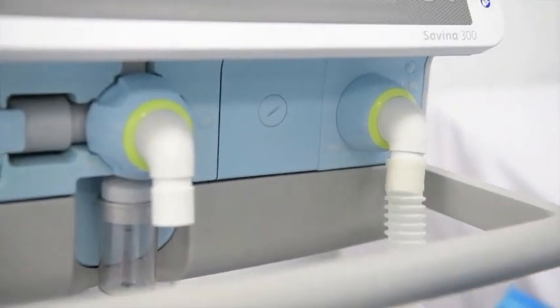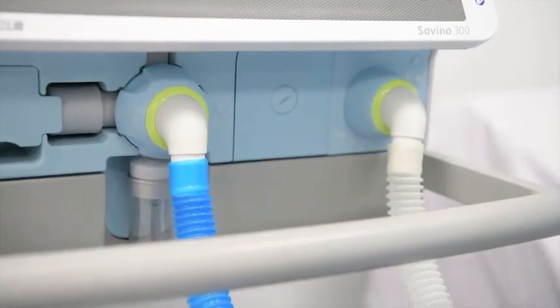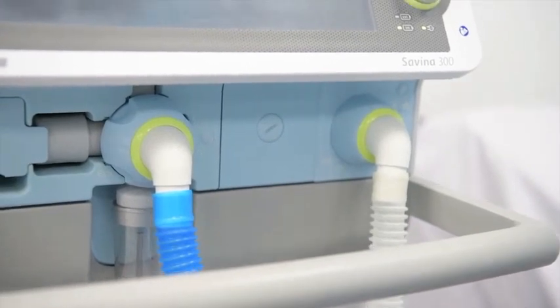One for inspiratory arm and the other one for expiratory arm. These two will make your system more flexible and convenient to do adjustment.